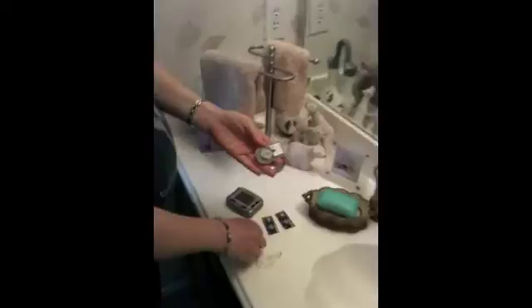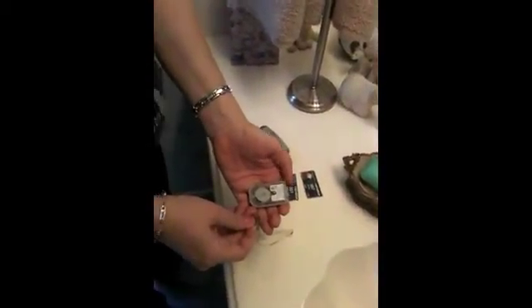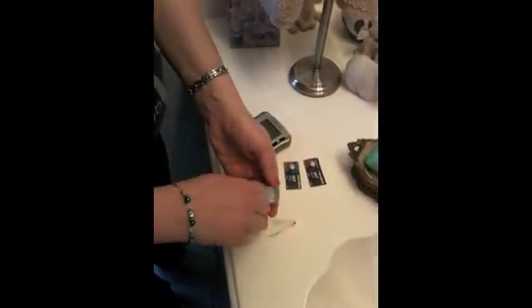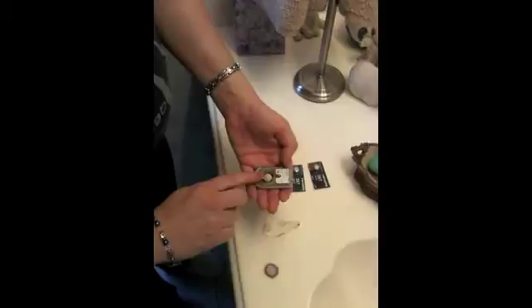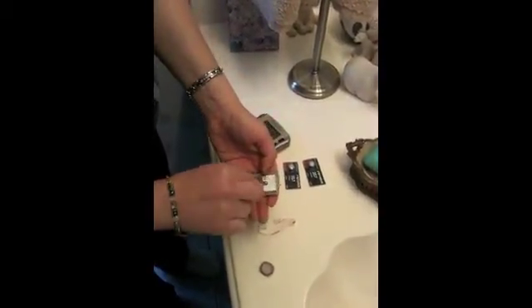At this point I need to change my transmitter battery. Every time you change the transmitter battery, you should check your transmitter for any cracks in the housing. You take the penny, give it a turn, and there is my dead battery.